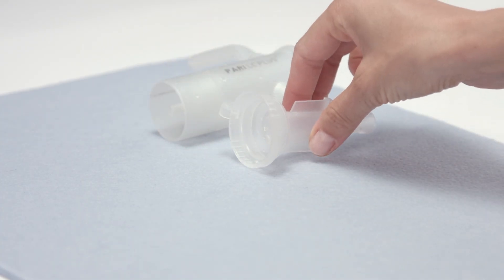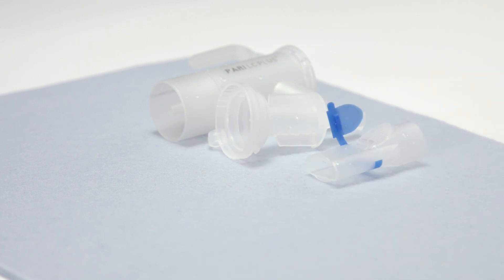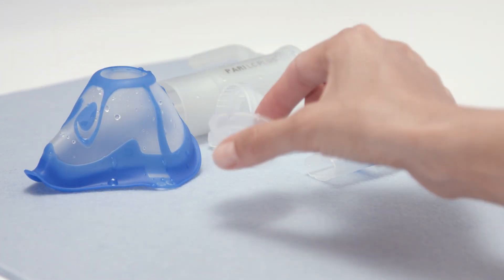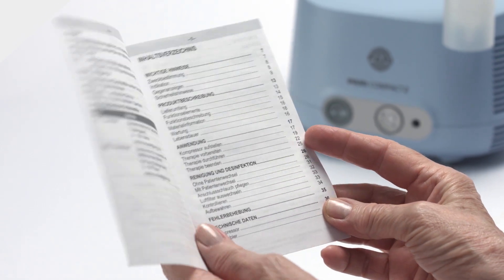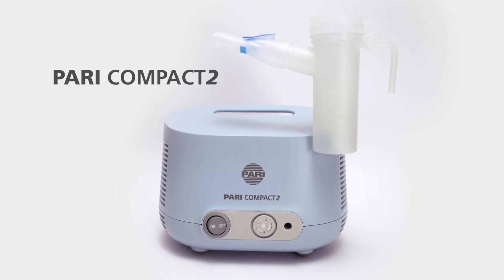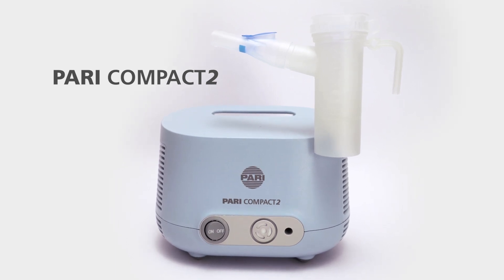Dry all components and store them in a dry, dust-free place. Always refer to the instructions for use for details on how to use and clean your PARI inhalation device.